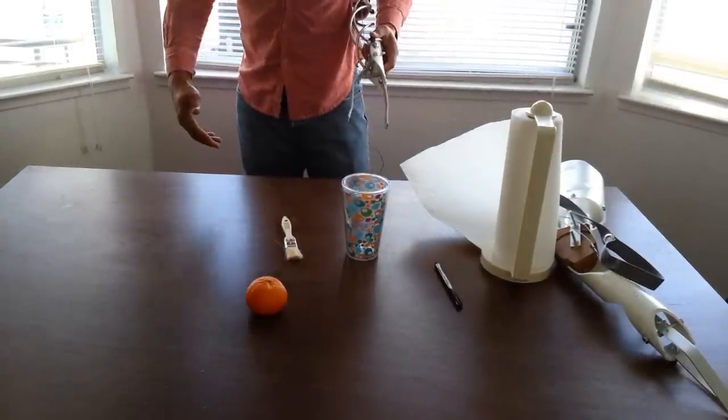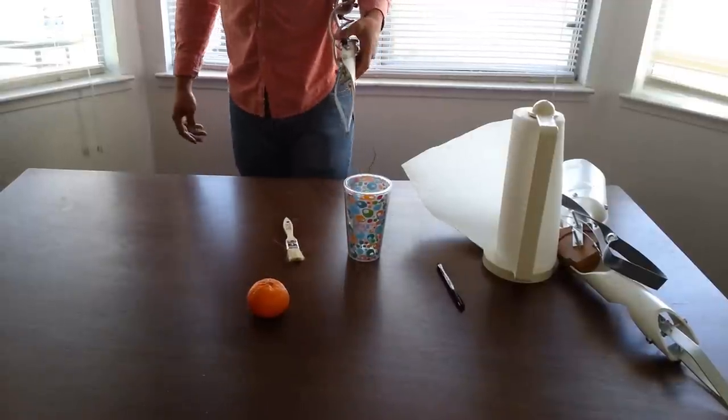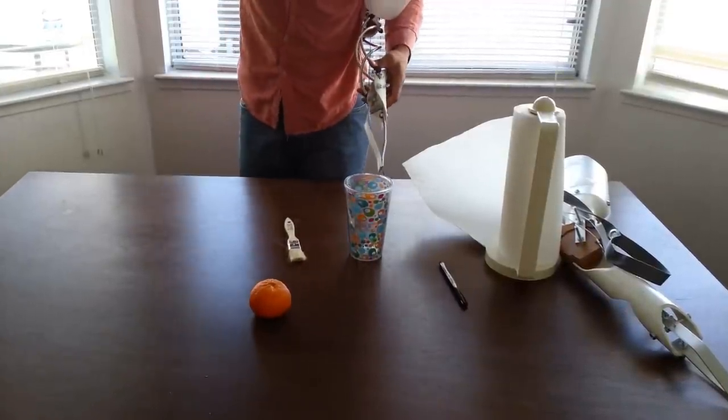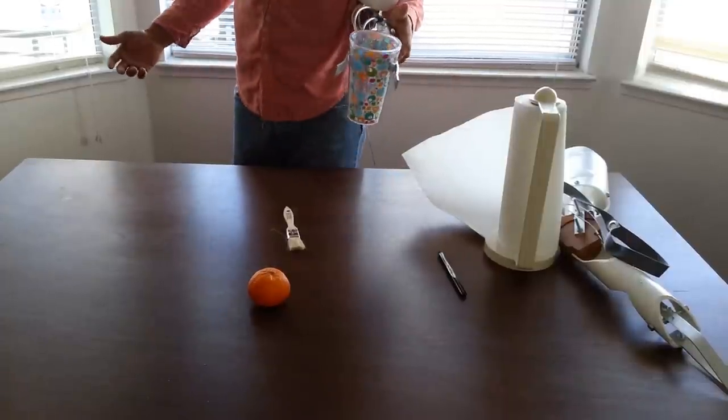So this works the same way. You just pull your arm. You're able to grab certain items just by the tip of your shoulder. So I'm going to demonstrate how it grabs also. It's able to grab items also.